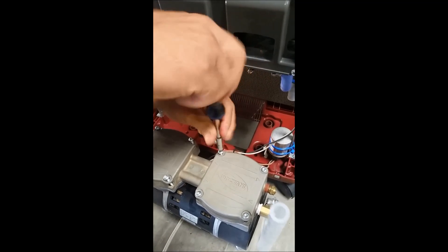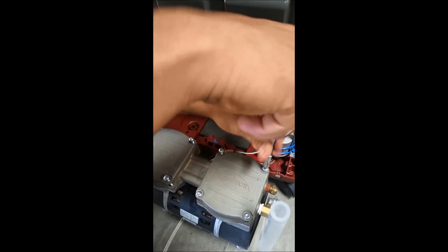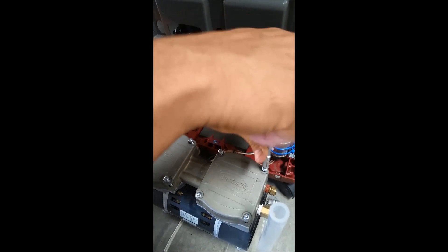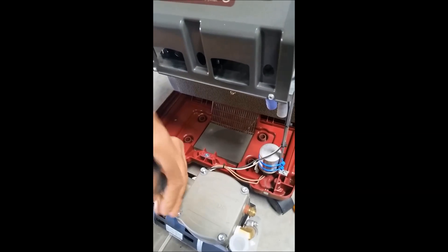On this one you don't want to use the power drill, because sometimes the screws are really tight and you can mess up the top of it and you won't be able to get it off anymore. Be sure to not use your power drill on these particular screws.